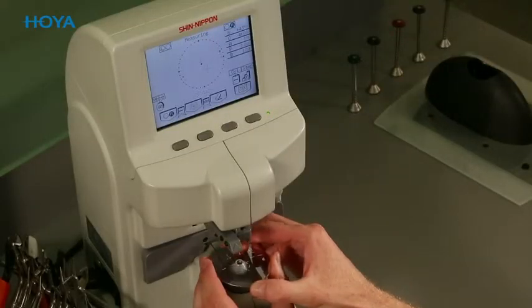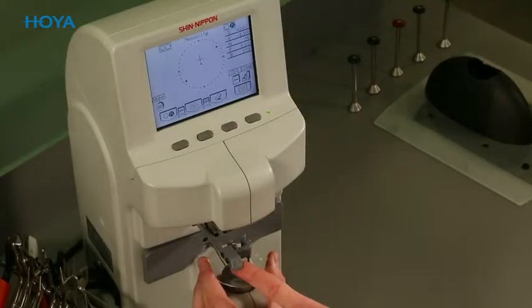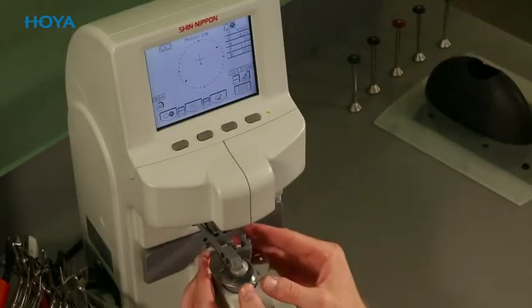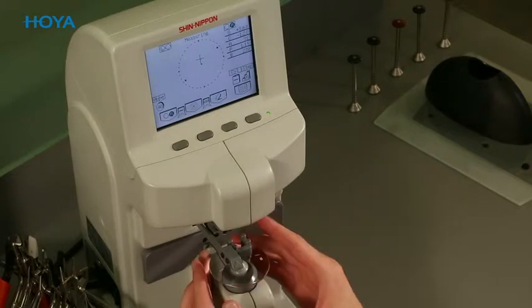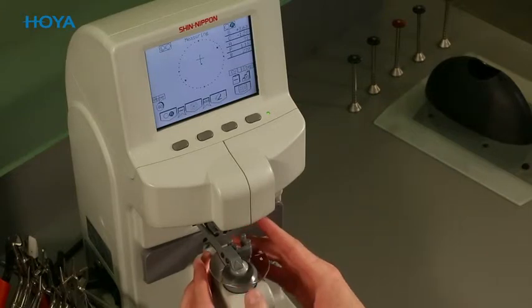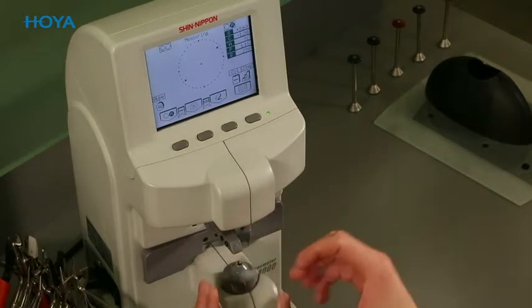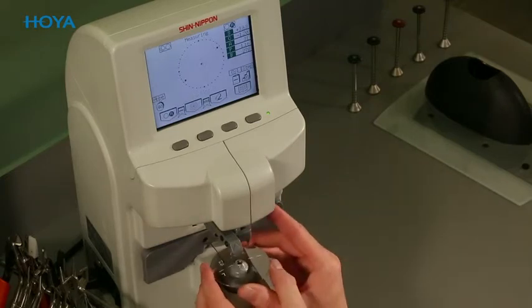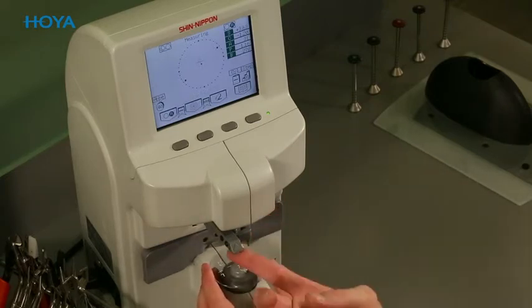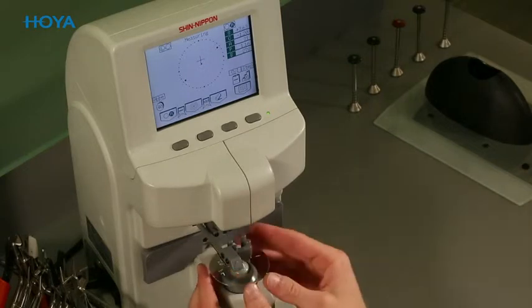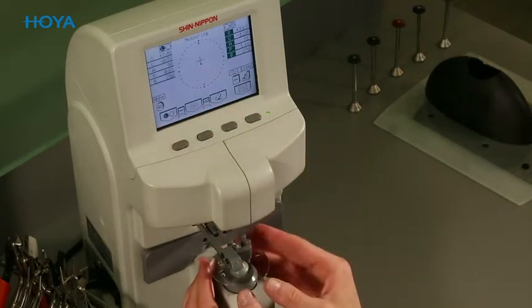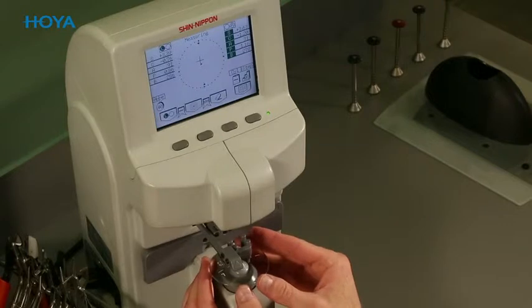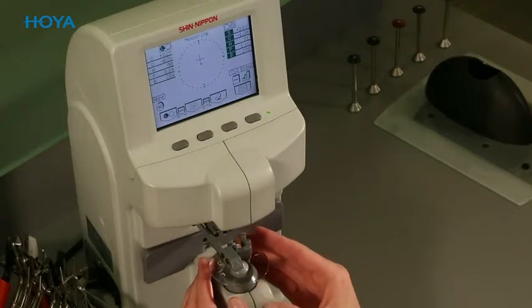In the prism reference point, only the prism needs to be measured. Even if you have not ordered a prism, you will measure a value at this point — the so-called thinning prism. In the case where you have not ordered a prismatic value, the most important thing is to measure the same prismatic value on both lenses, right and left.